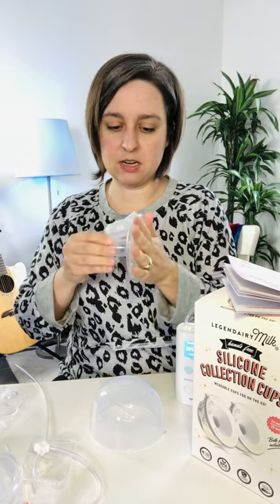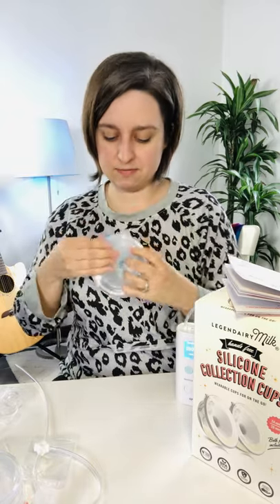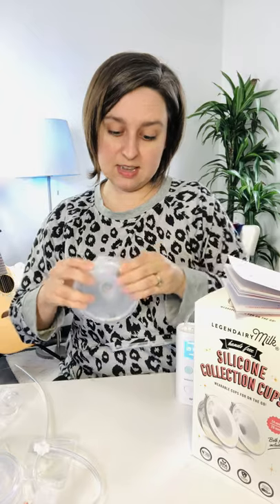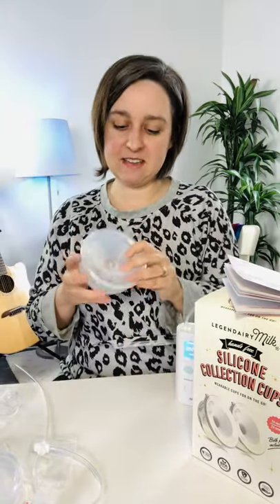It's only going to go on one way and fit in the flange. You put this on the flange and then the cup around that — pretty easy. There's a little hole where that goes. I'm interested to see how this pours, honestly. You can check my IGTV video from yesterday where I did the Carat cup. Assembled and ready to go.